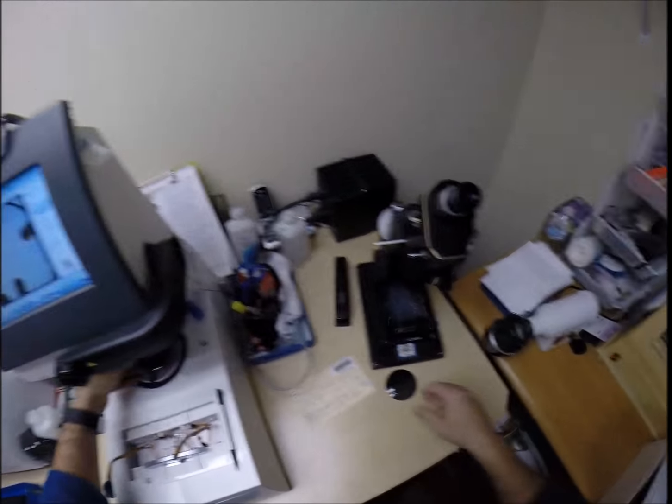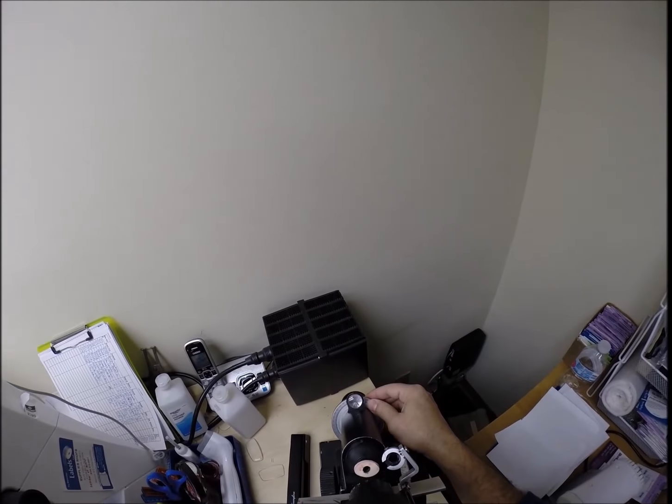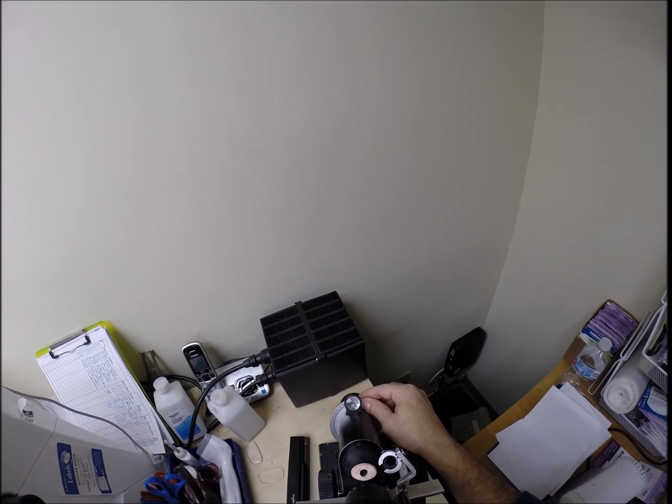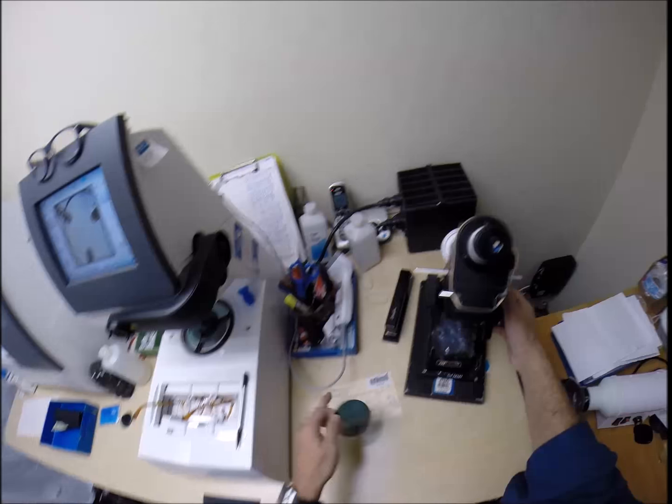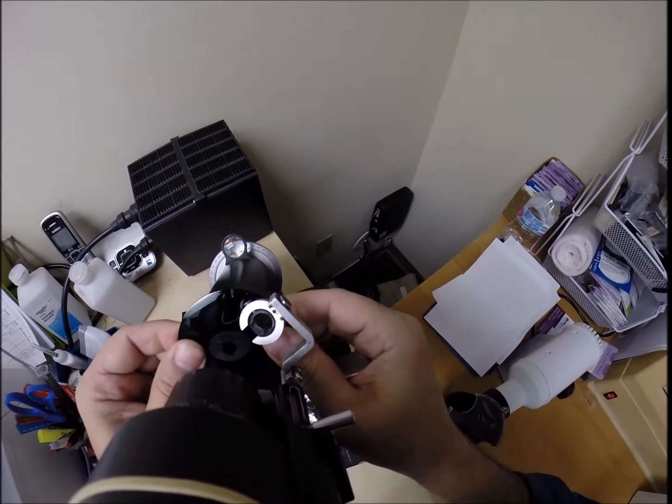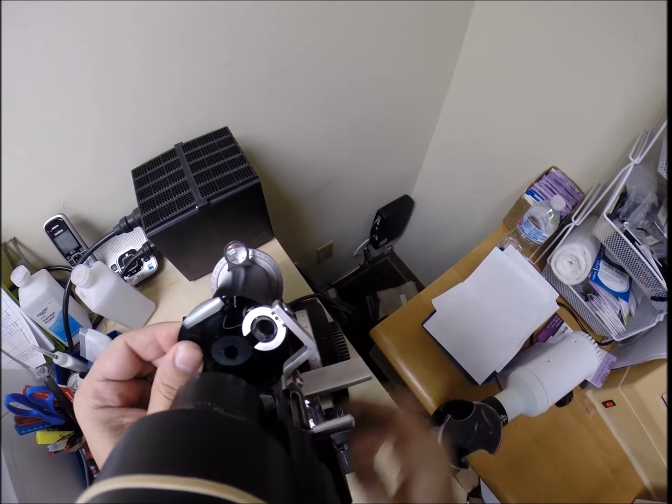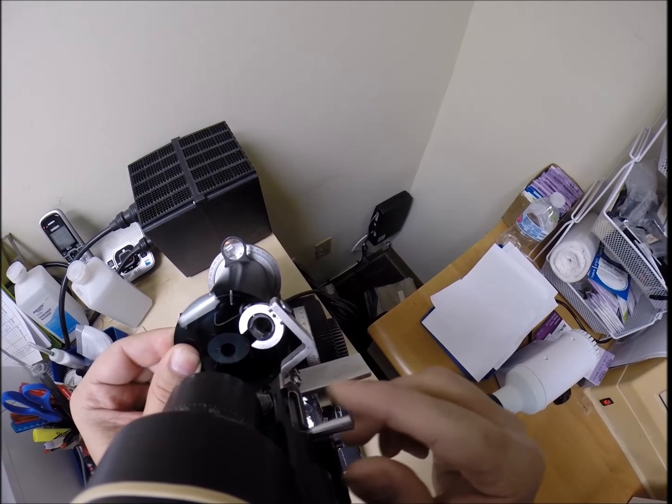Let's do the same thing now for the left lens. Spin the fine-tune knob to four. Put the power drum on minus one and a quarter. And just check everything out here.